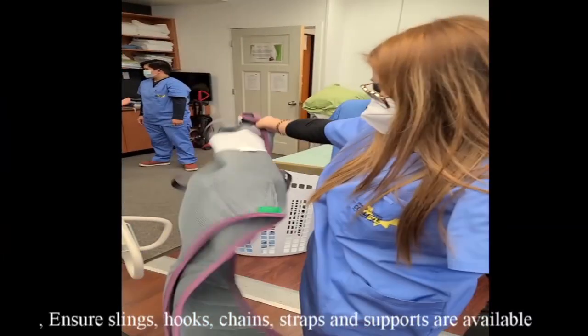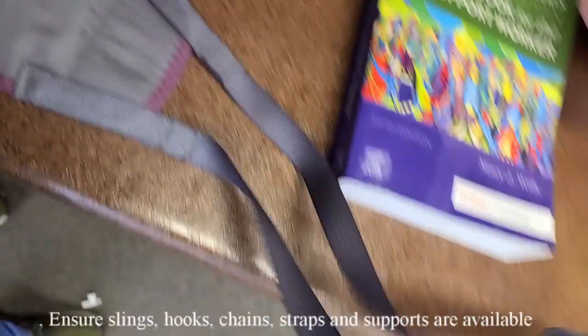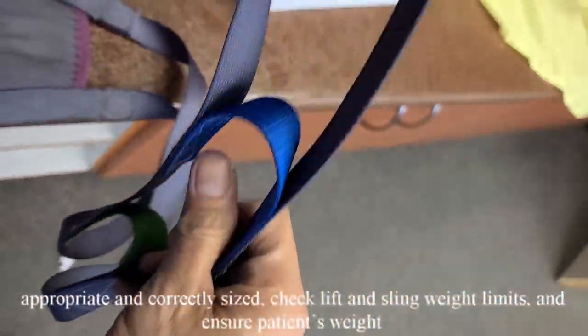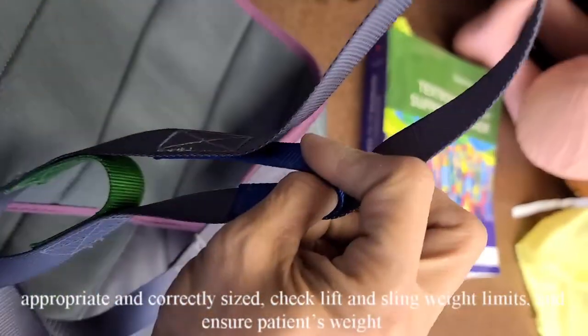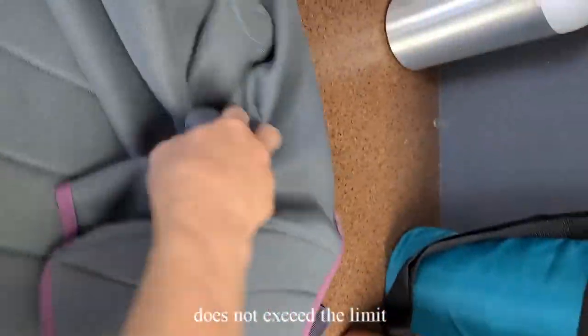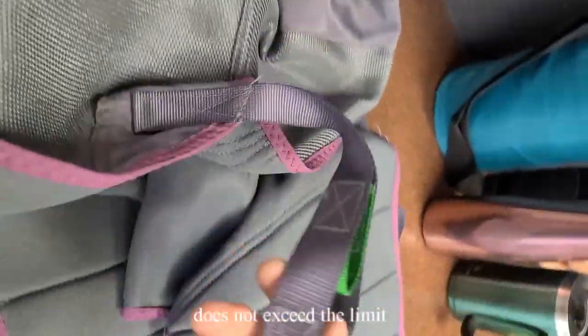Ensure slings, hooks, chains, straps and supports are available, appropriate, and correctly sized. Check lift and sling weight limits, and ensure the patient's weight does not exceed the limits. Do not use a sling with any signs of wear.